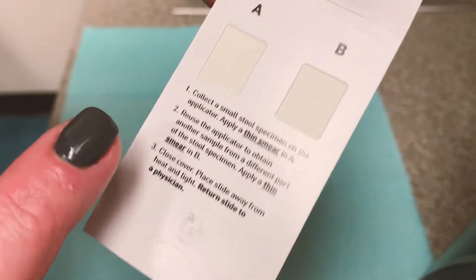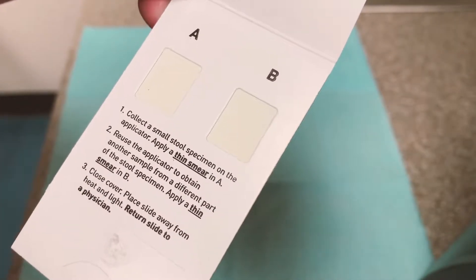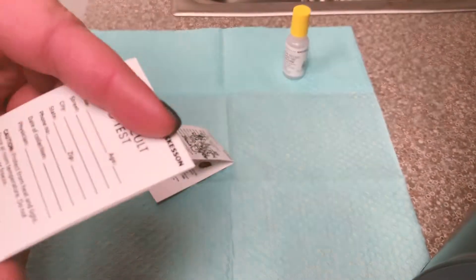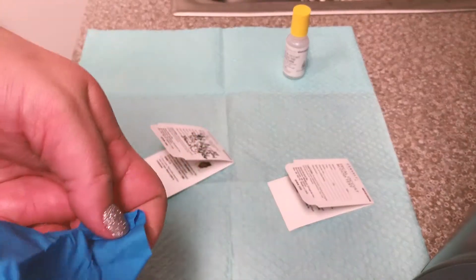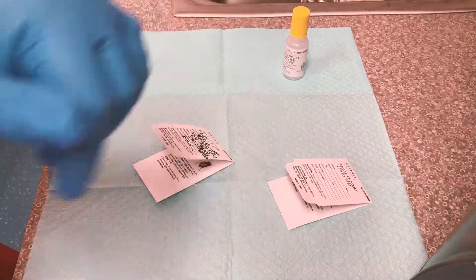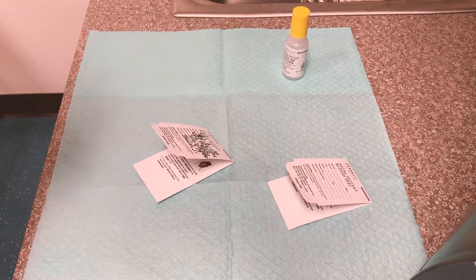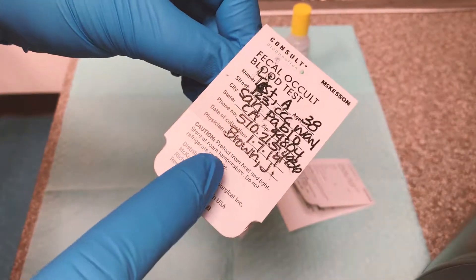The important part with collecting the stool samples is to make sure it is as free from urine contamination as possible. Most of the time patients will accomplish that by placing a urine hat backwards on the toilet and collecting their stool specimen into it, then taking a small sample from there. Otherwise, some patients will have luck using saran wrap over the toilet bowl or other methods to catch the stool and keep it separate from the urine.